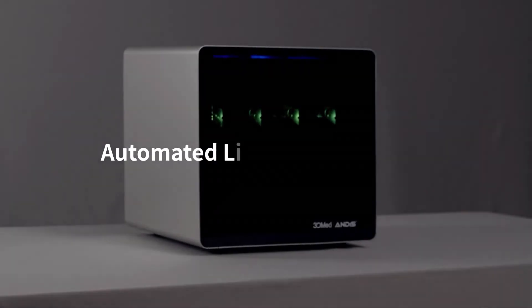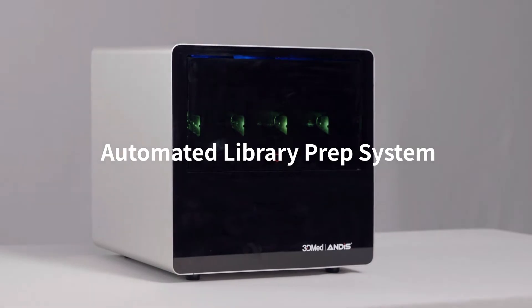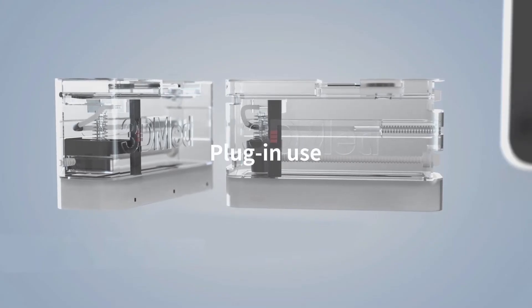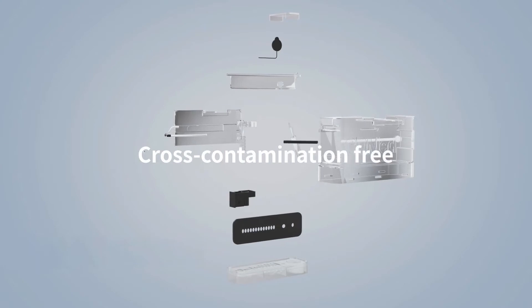Automated library prep system enables the labs to do NGS experience-free. Cartridge-based and enclosed prep kit designed to avoid cross-contamination.